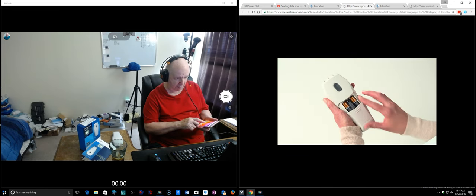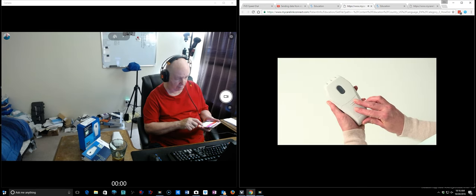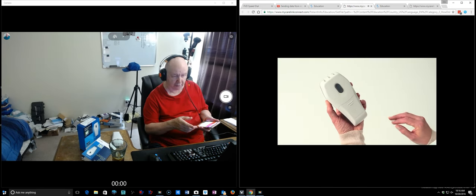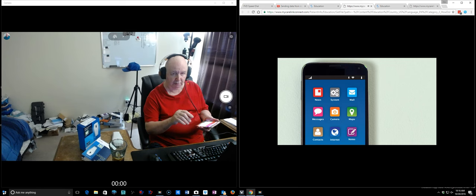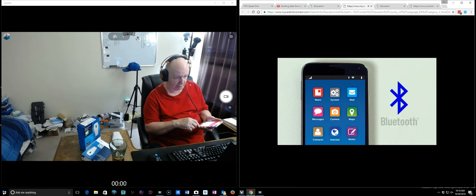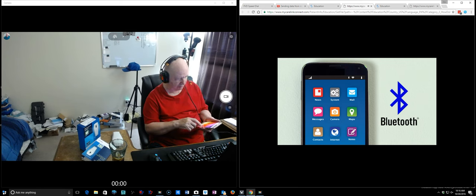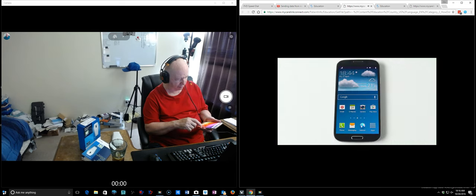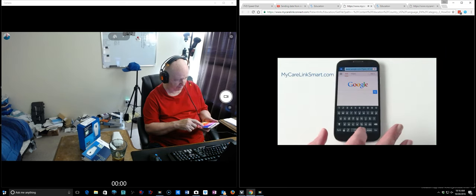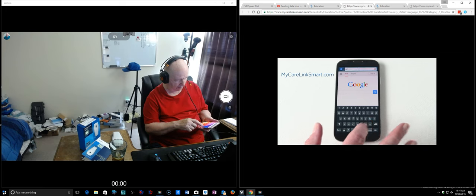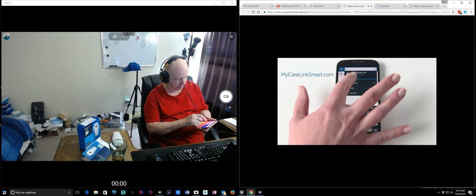Here is, oh look at that, just with fingertips. She, or he, you can see I wasn't paying any attention, just popped that thing opened up and popped those batteries in there so quick.